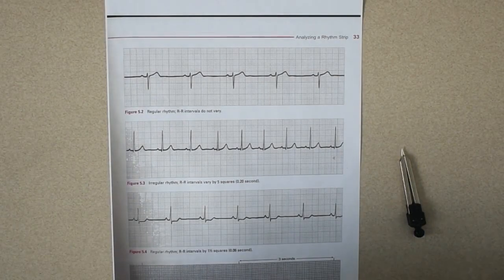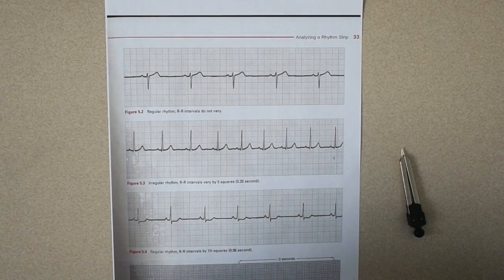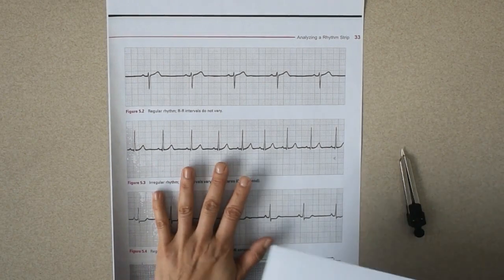Okay everyone, I just wanted to show you a couple different techniques about measuring intervals on the ECG.